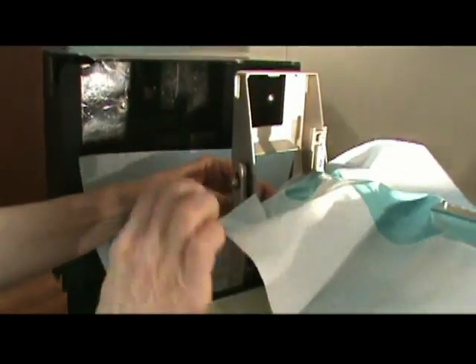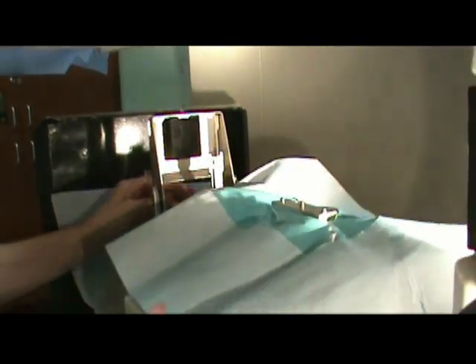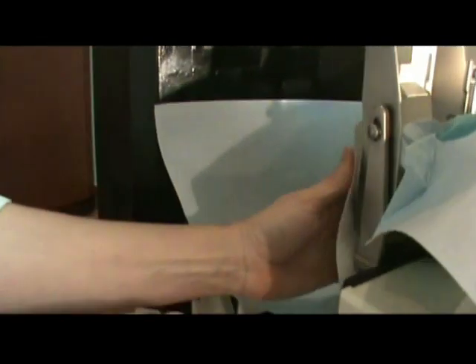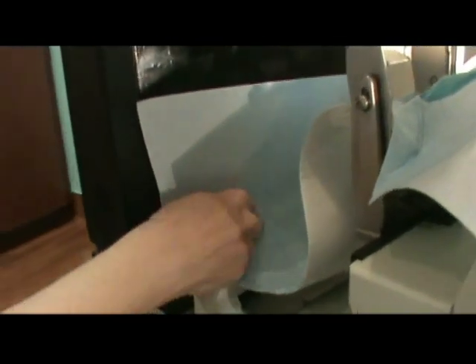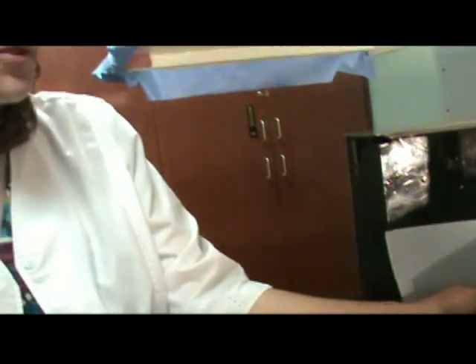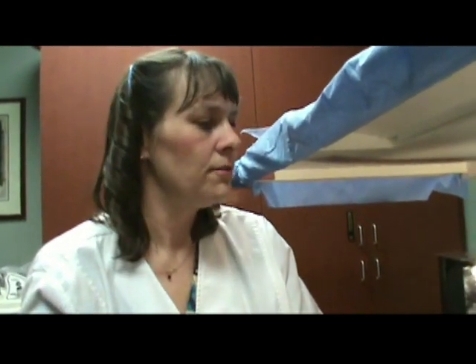A couple of reasons for this: it will actually maintain your fluids right here. You'll also notice this is our patent pocket — it's right down here and will contain all your fluids as they drain into it. This is all absorption material, so it absolutely absorbs all the fluids as you go.